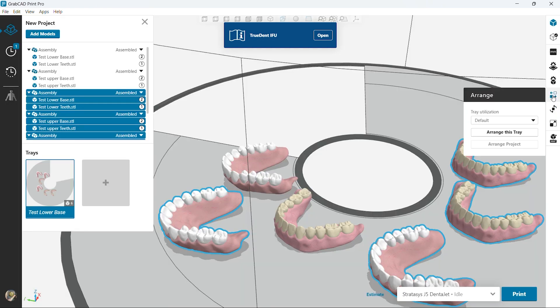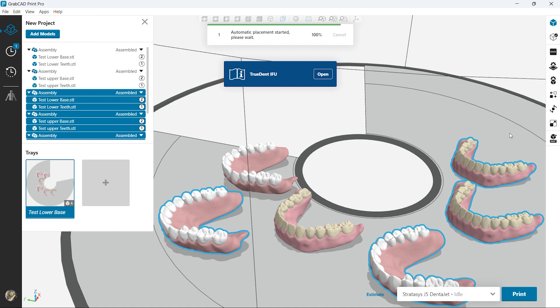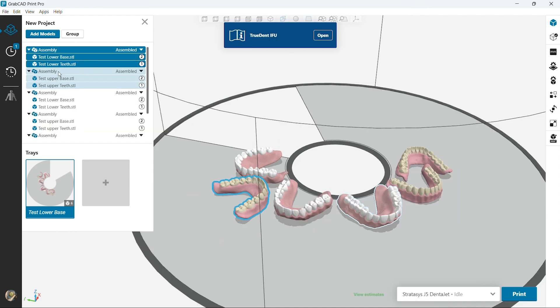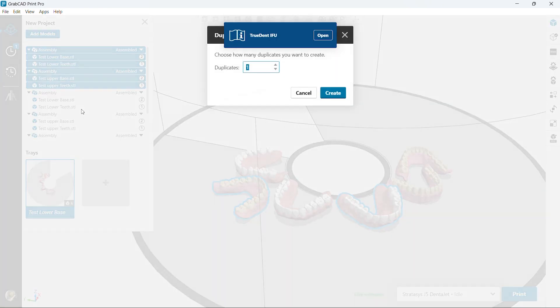This is to show if you're doing multiple cases. Of course it would make sense to print multiple dentures unless you're doing multiple dentures for a customer, which is an option. You could have three different cases on one print.